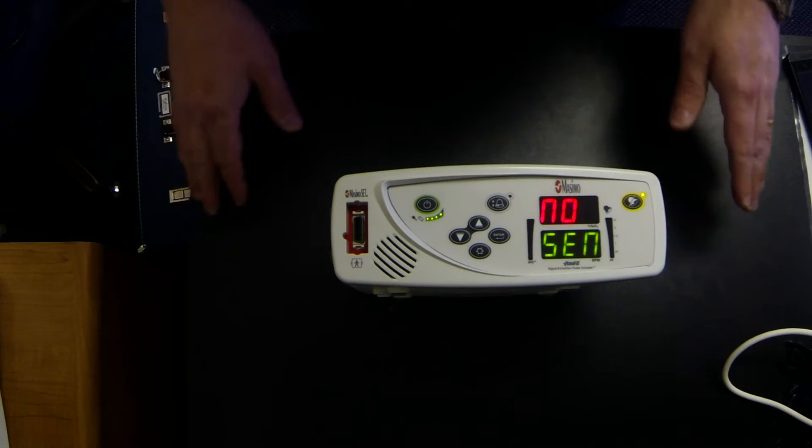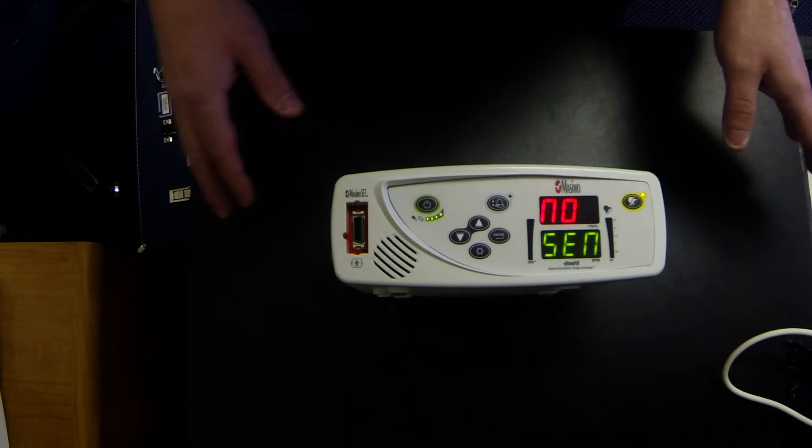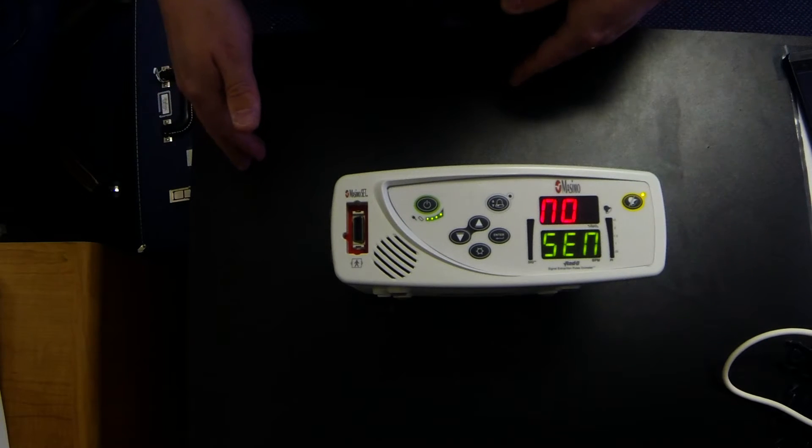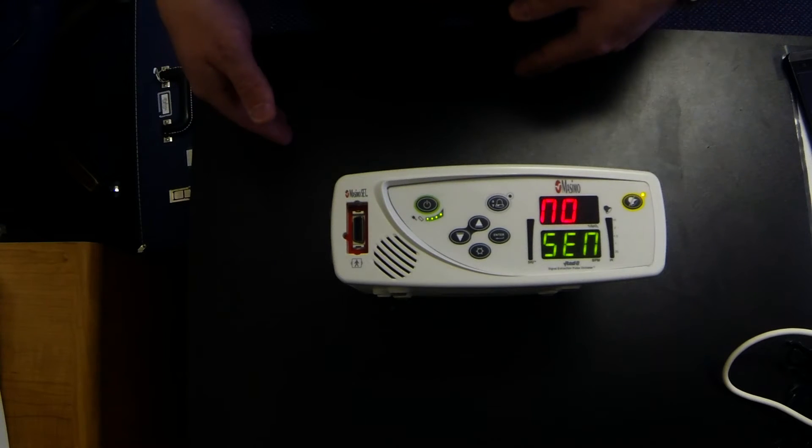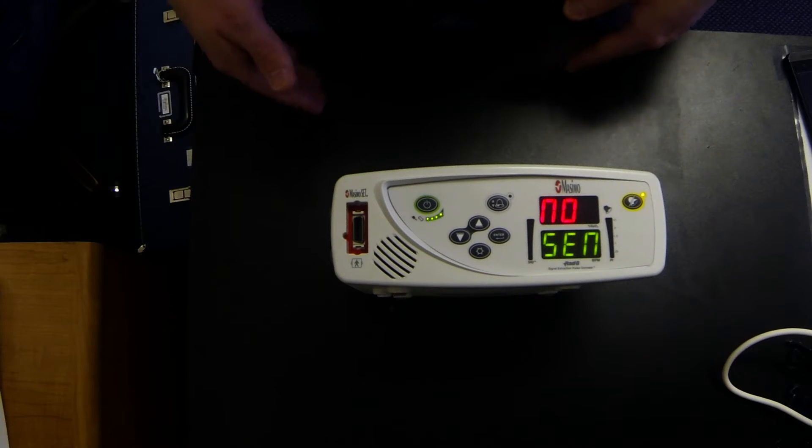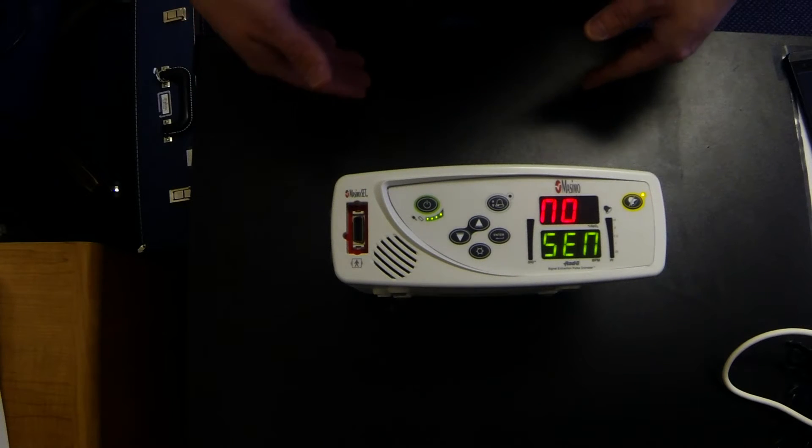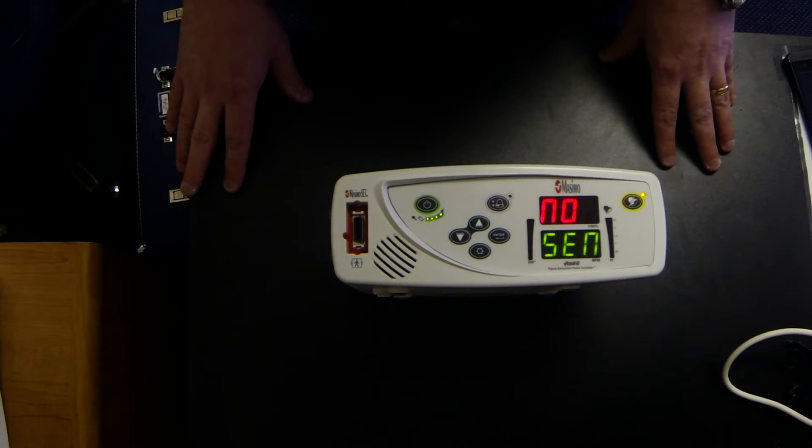If you tend to get into the habit of unplugging it and using it on battery power during the day and the power were to go out at night, then you wouldn't have a full battery at night time when it's more important. So we just ask that you keep it plugged in 24/7.